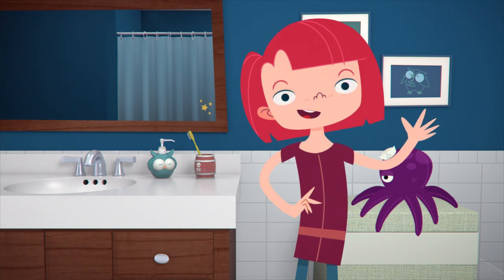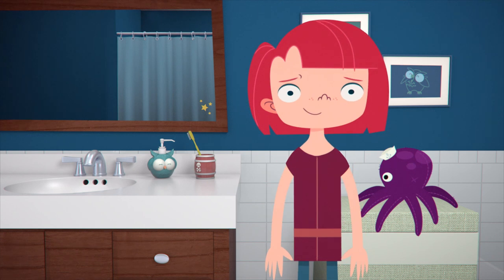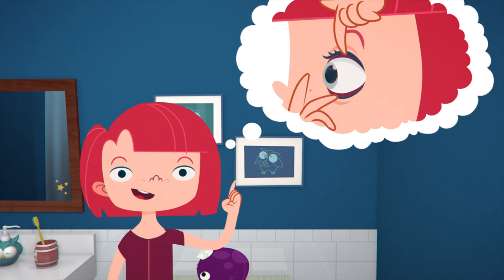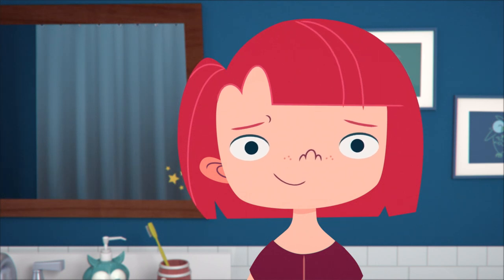This is Emily. Emily has something in her eye. Don't worry, it's just your contact lens. Remember when you put it in this morning? Well Emily, it's time to get that lens out of there. You're going to be fine, trust us. We'll tell you exactly what you need to do.